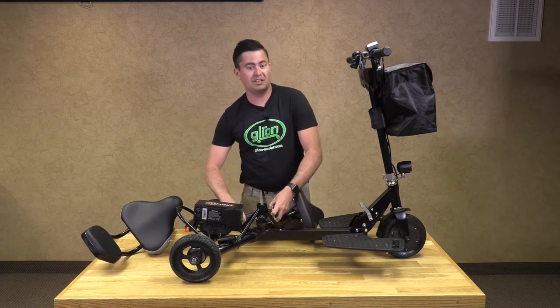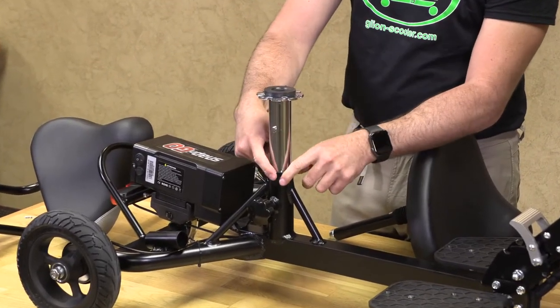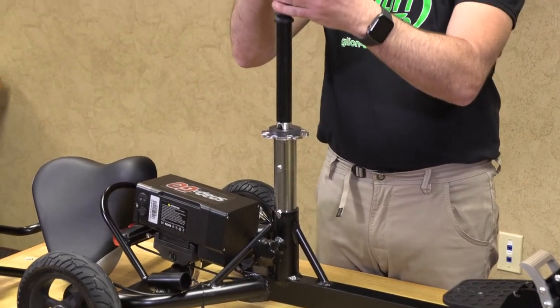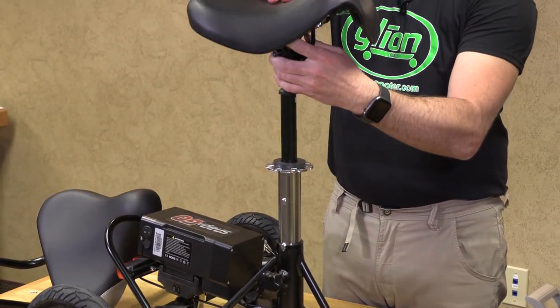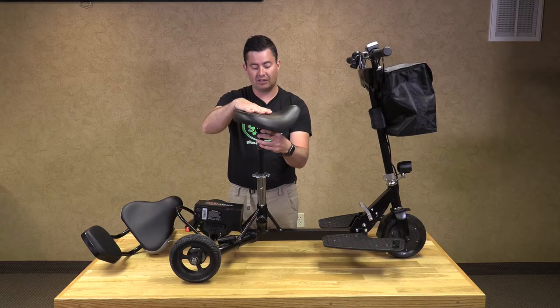You will take your seat post, just like you do with the Deluxe seat, placing it in and making sure the pegs sit in the notches. Then you will take your seat and put it in. I always put it in at a slight angle so that when you twist it, you can feel it lock in place, making sure that it is stable.